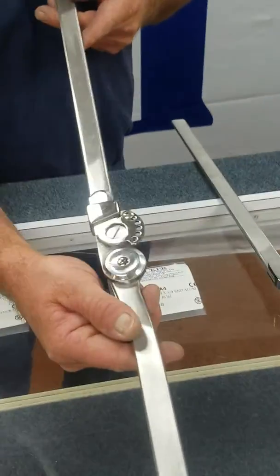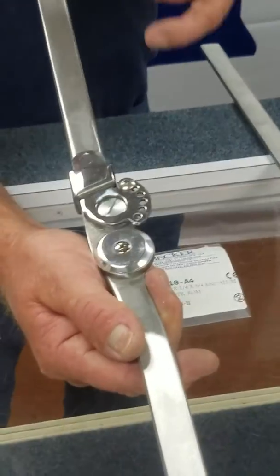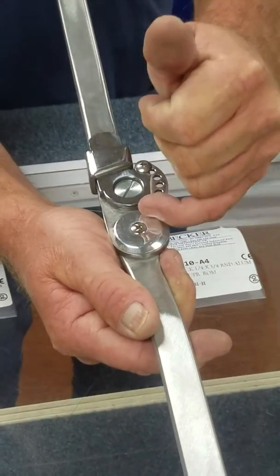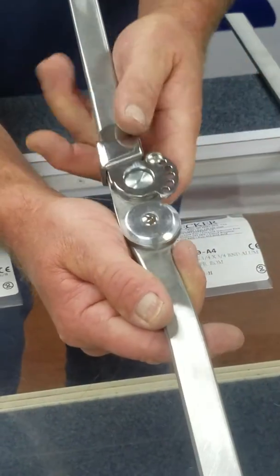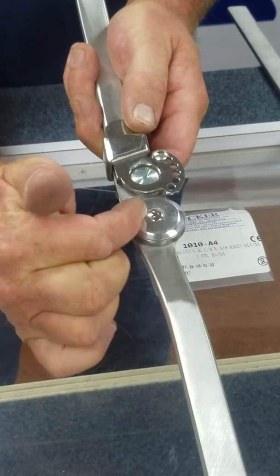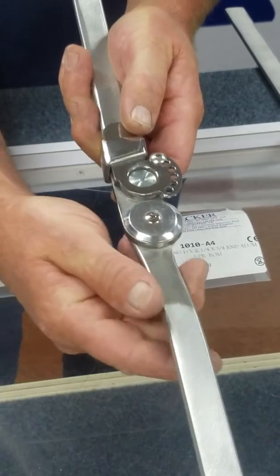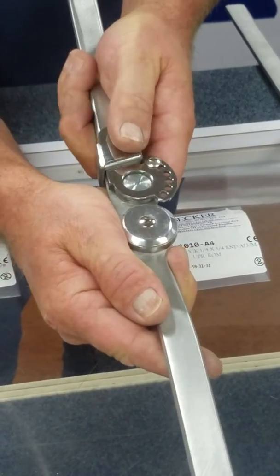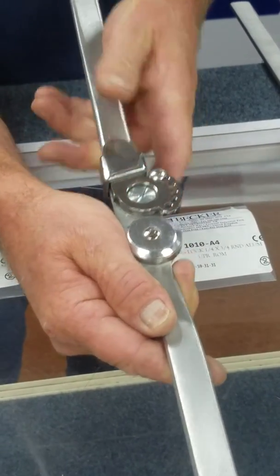The range of motion has several increments here. You can change for hyperextension or knee flexion, and it has a ring lock.